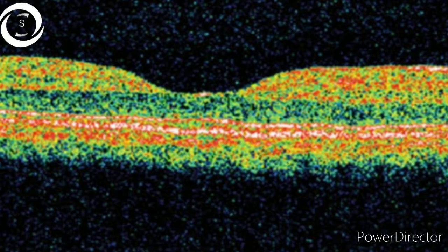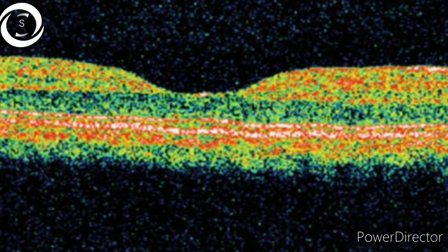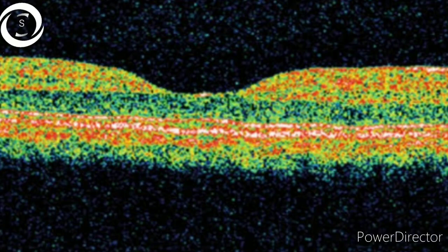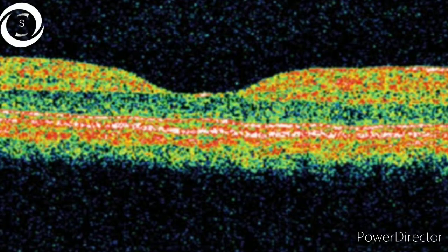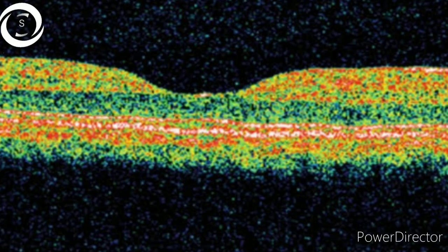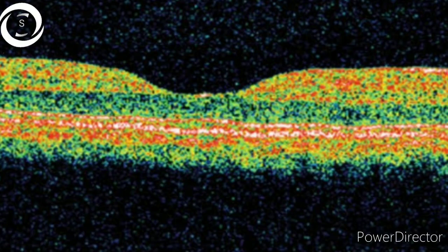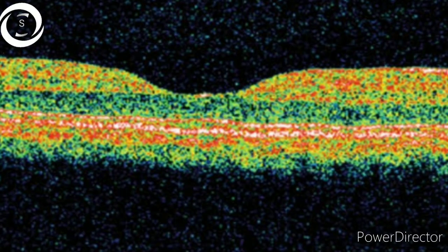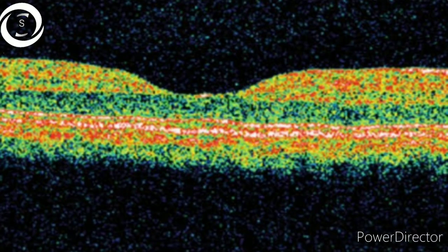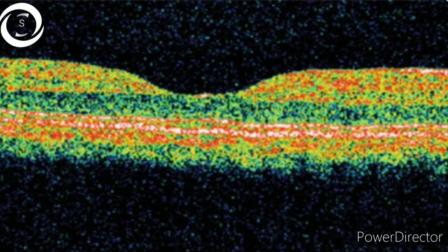OCT emerged as an investigation tool in the 1990s. The first generation OCTs were time domain, as shown here in a false color printout. The time domain OCT has an axial resolution of 10 microns and acquired 400 A-scans per second, using a moving reference mirror to acquire the scans — that's why its speed was limited.